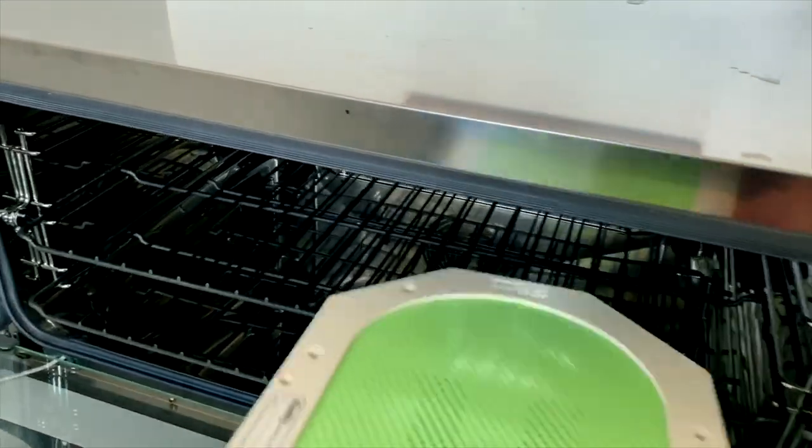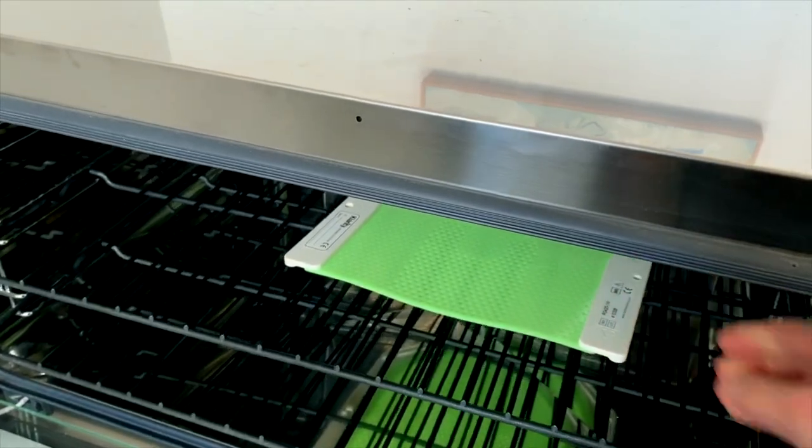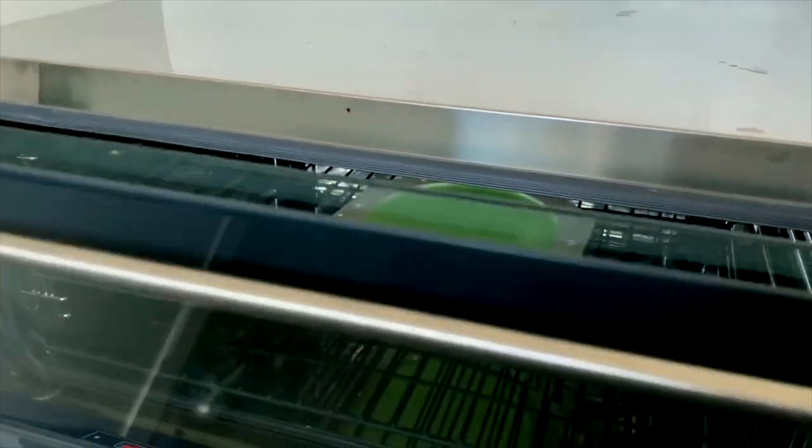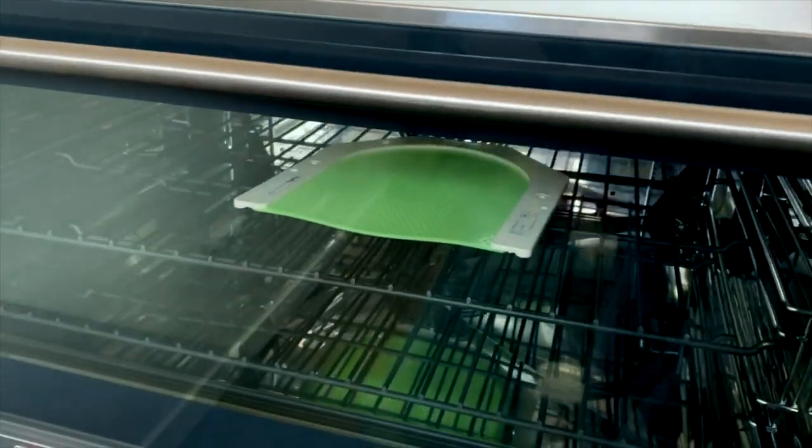The mask should be ready in 2-3 minutes and the easy viewing glass door will aid in seeing when the thermoplastic is slightly transparent.